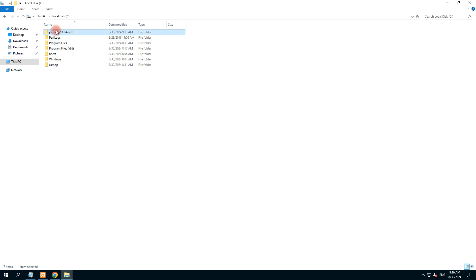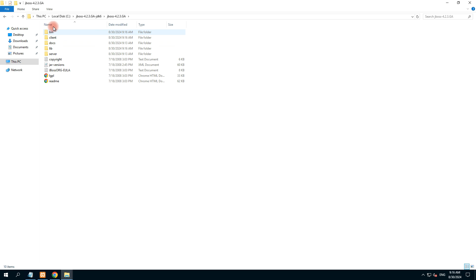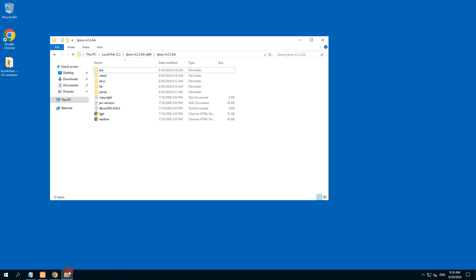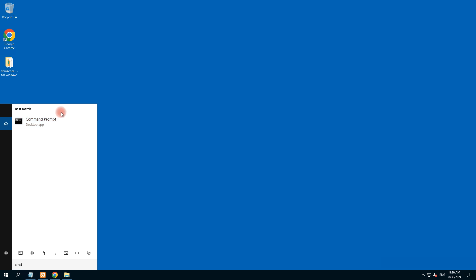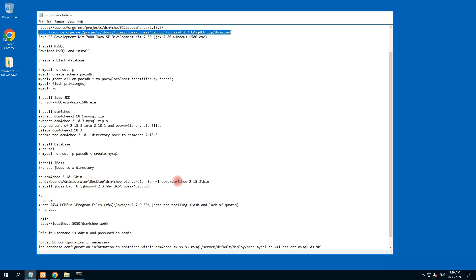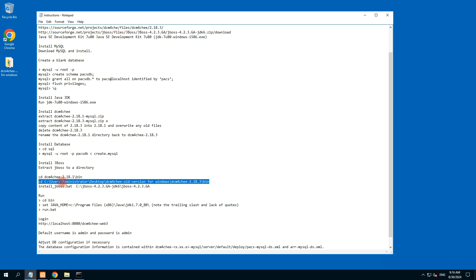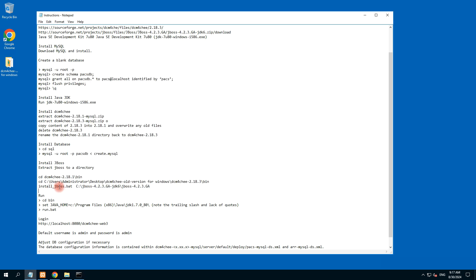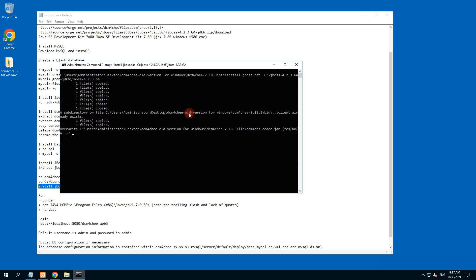The JBoss directory is now available in C drive. Now we need to open the command prompt as administrator. We need to add the location of DCM4CHEE — set your location where DCM4CHEE was extracted. I extracted it here — just copy and paste the path. We are in the right directory. Now we install JBoss into the C drive directory — copy the command, right-click and run it.